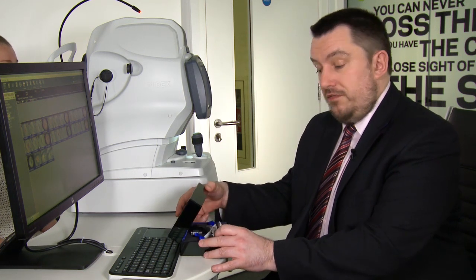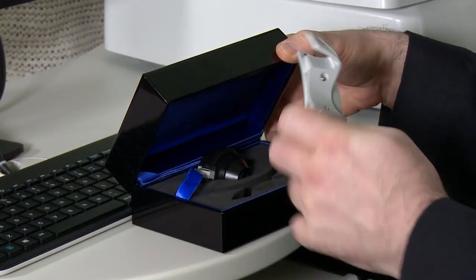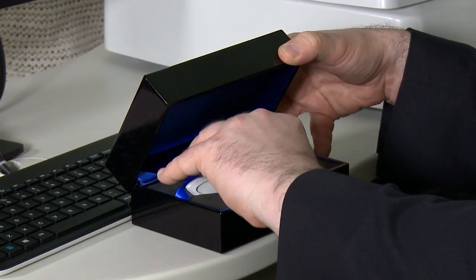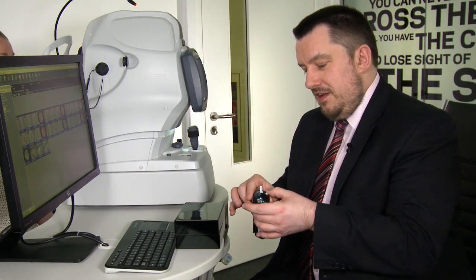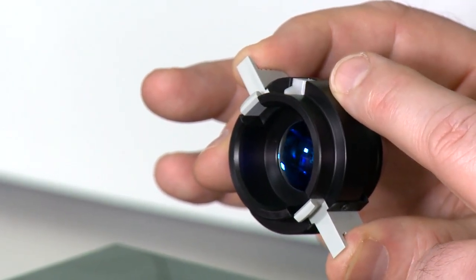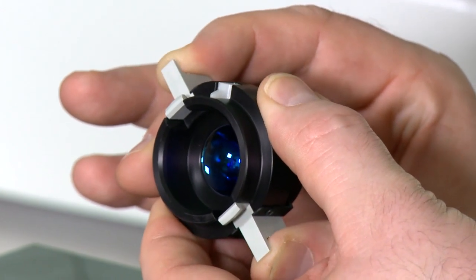So now that we've looked at posterior OCT scans, we can of course do anterior OCT scans with this device. What we need to do is attach the anterior module adapter, which we'll find in this box that you'll get with the device. There is also a forehead rest, which you can add, particularly useful for anterior photography as opposed to anterior OCT. Now the anterior module you need to be careful with. It is a quite delicate lens that has a little white notch that needs to fit into a notch at the front of the OCT, with these two calipers that we push in like so.